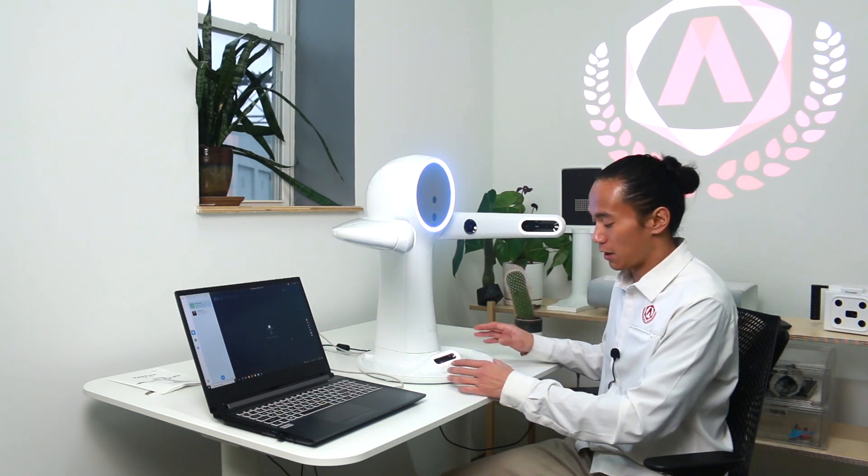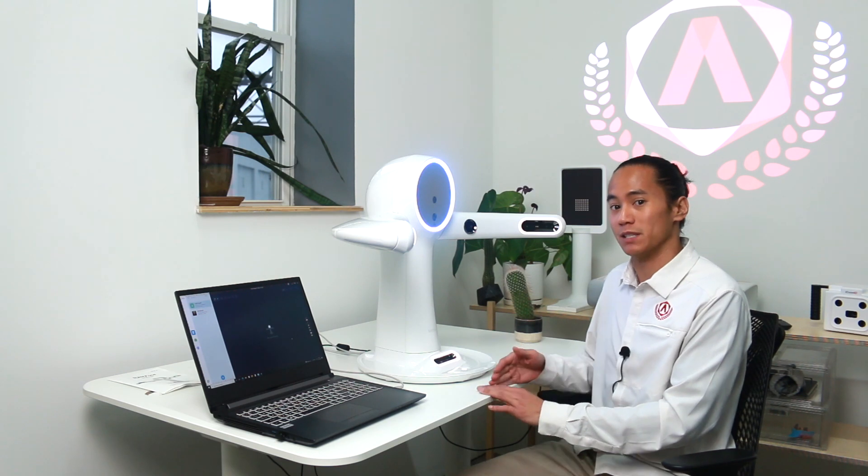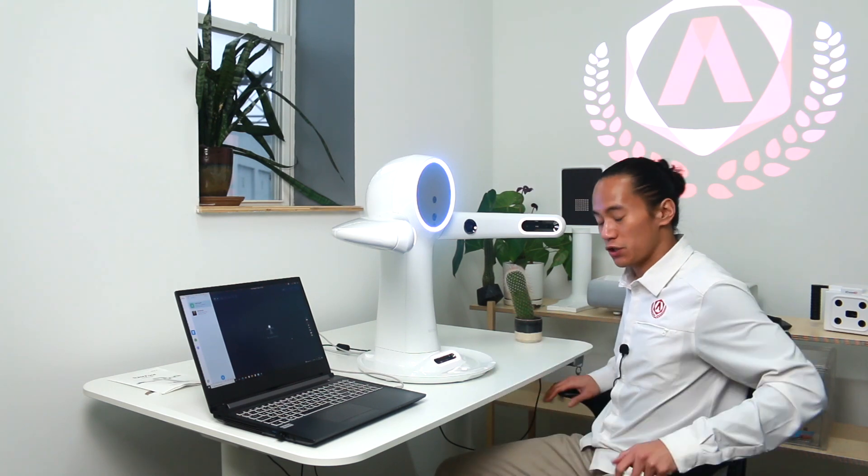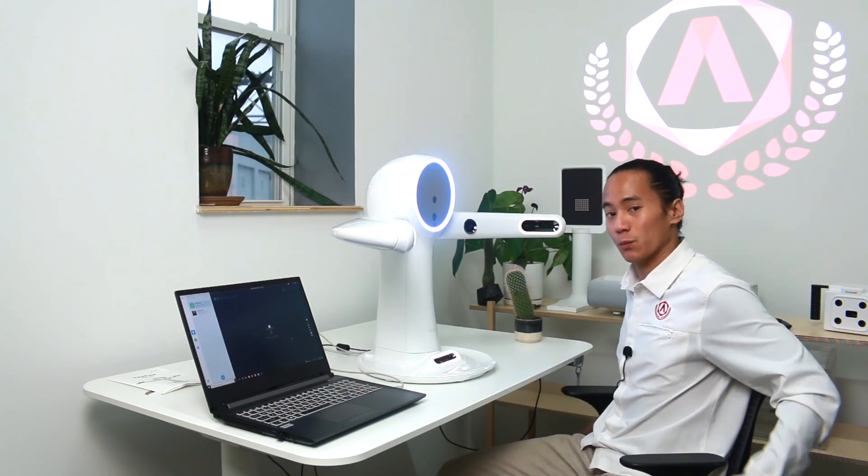After we register the patient into the software, we're going to ensure that the RayFace scanner itself is seated 10 centimeters or 4 inches away from the table's edge. We want the patient to be seated in something with lumbar support so that everything can remain still.